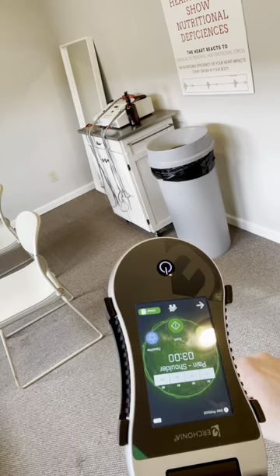This is a GVL. It's a class two low level laser. I'll turn it on and put it on my shoulder so you can kind of see what it's doing. The GVL is FDA cleared for exactly what we're doing — for pain and inflammation — so it's fantastic for shoulder injuries.